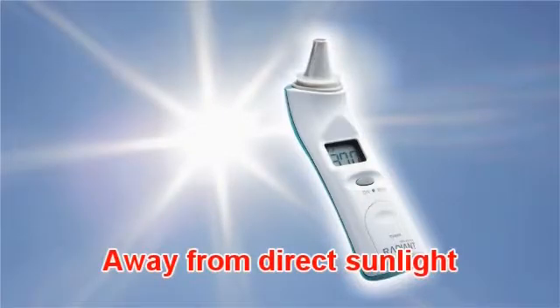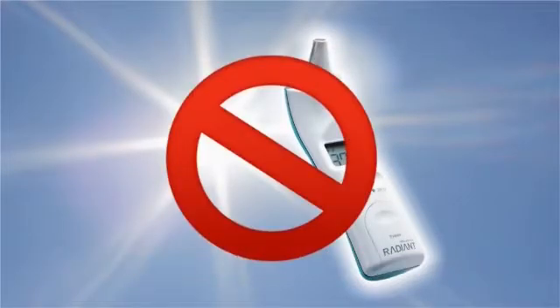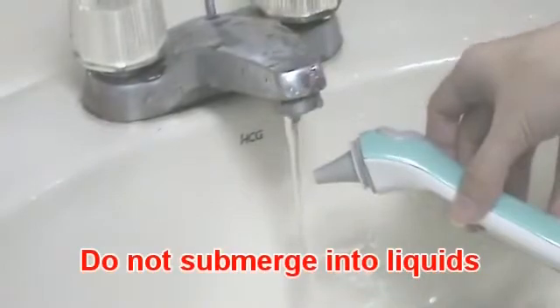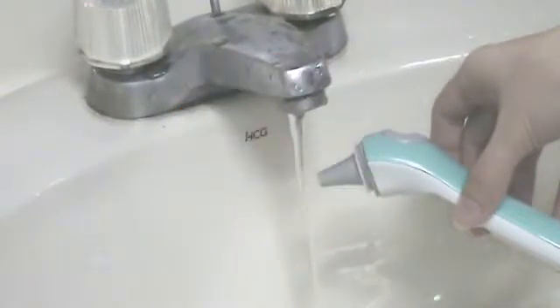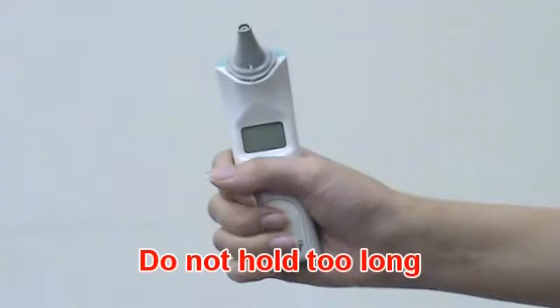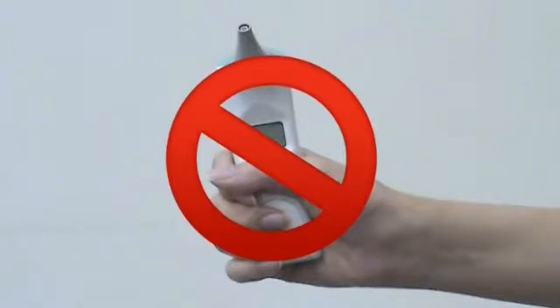Keep the unit dry and away from direct sunlight. Do not submerge the thermometer into any liquids. Holding the thermometer too long may cause a higher ambient temperature reading, which could make the ear measurement lower than usual.